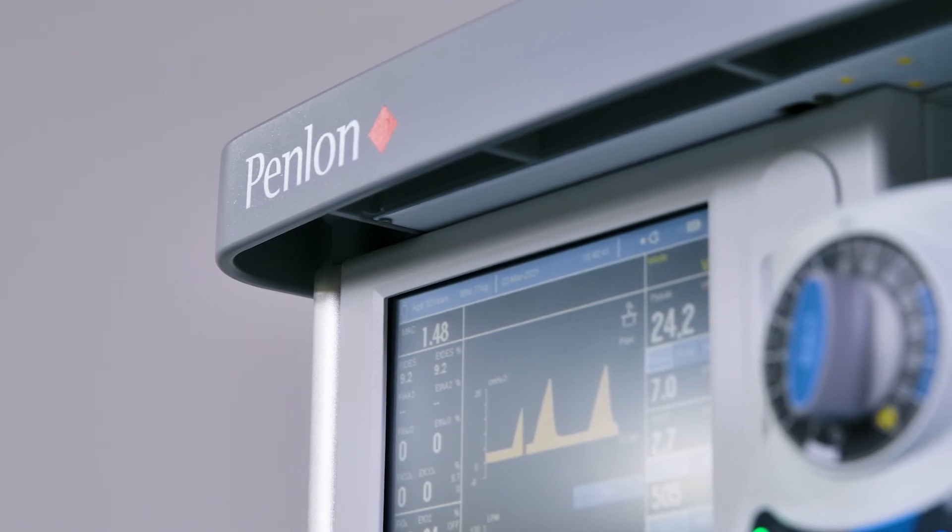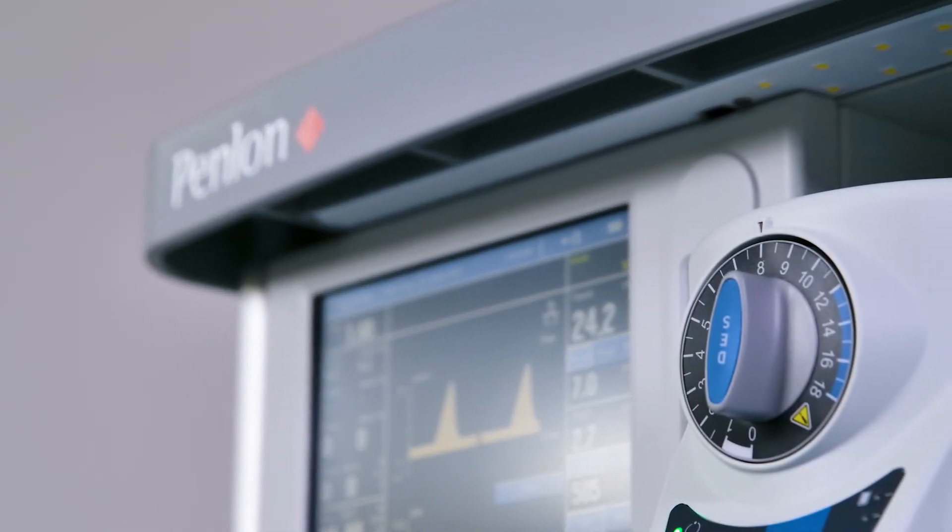Daily Pre-Use Checklist. Complete the pre-use checklist as detailed in the Sigma EVA User Manual.